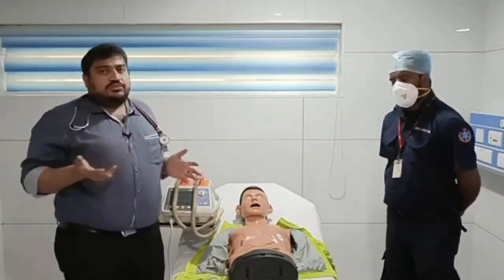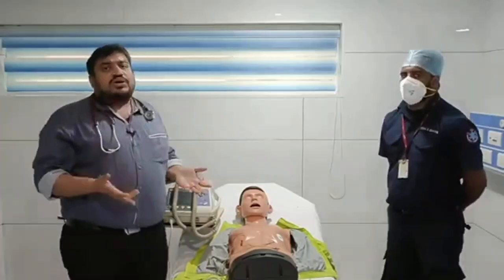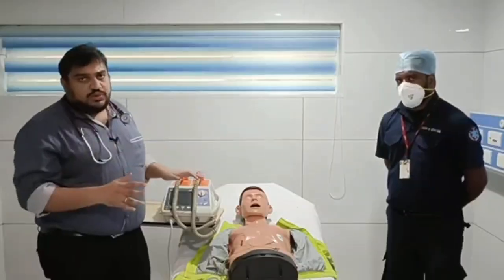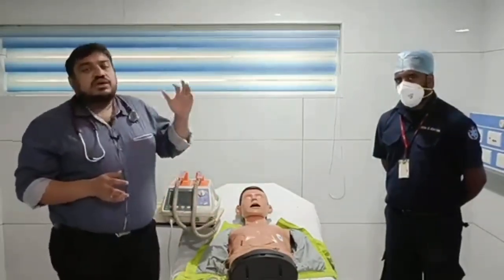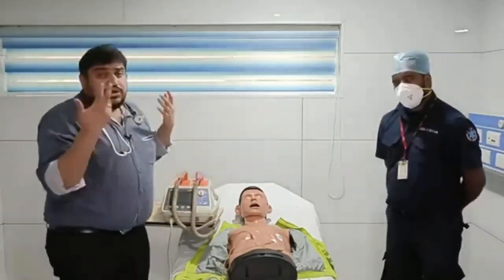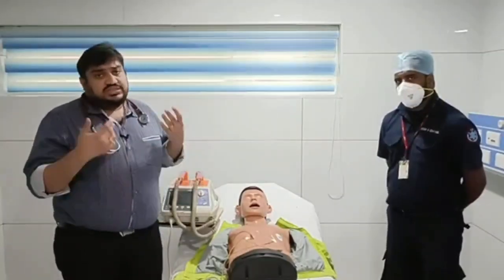So what you need to remember is that you need to use your defibrillator in a scenario where it is a cardiac arrest and it is a shockable rhythm. You have to use it like what I have mentioned. So first of all, you have to recognize that it is a cardiac arrest. You have initiated the CPR. You are connected to the monitor, red, yellow and green, or using the paddles, you have analyzed the rhythm.